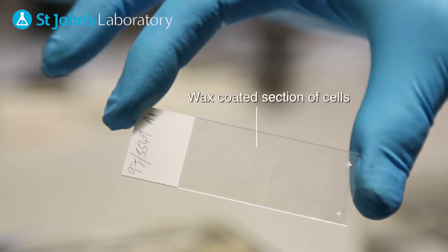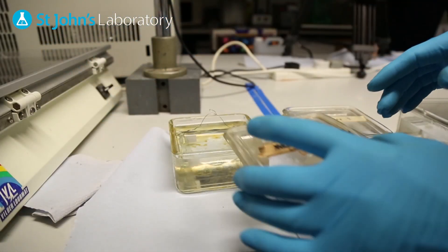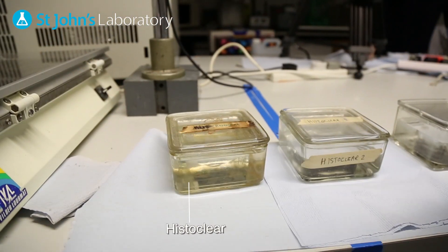When you receive your tissue section it is likely to be coated with wax, so to remove this submerge in Histoclear for two 15 minute periods.